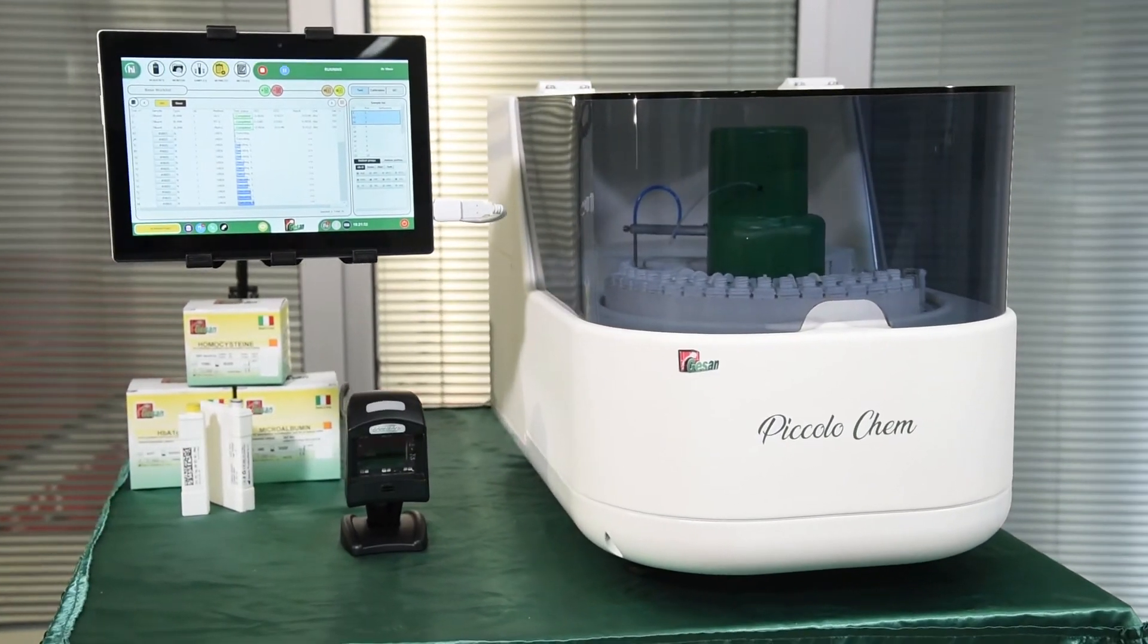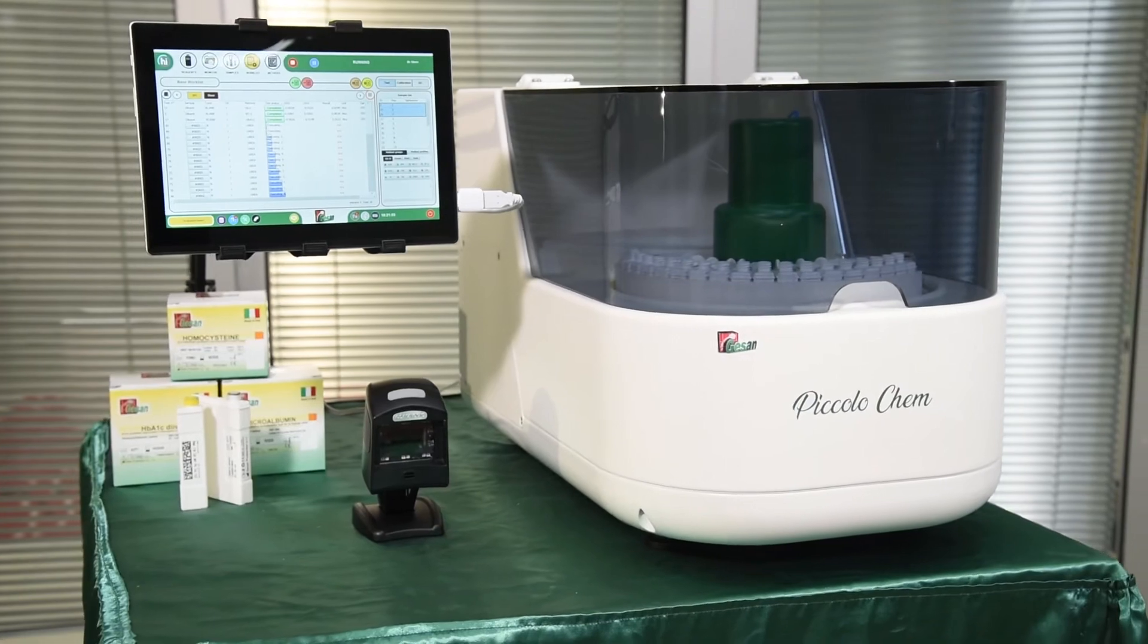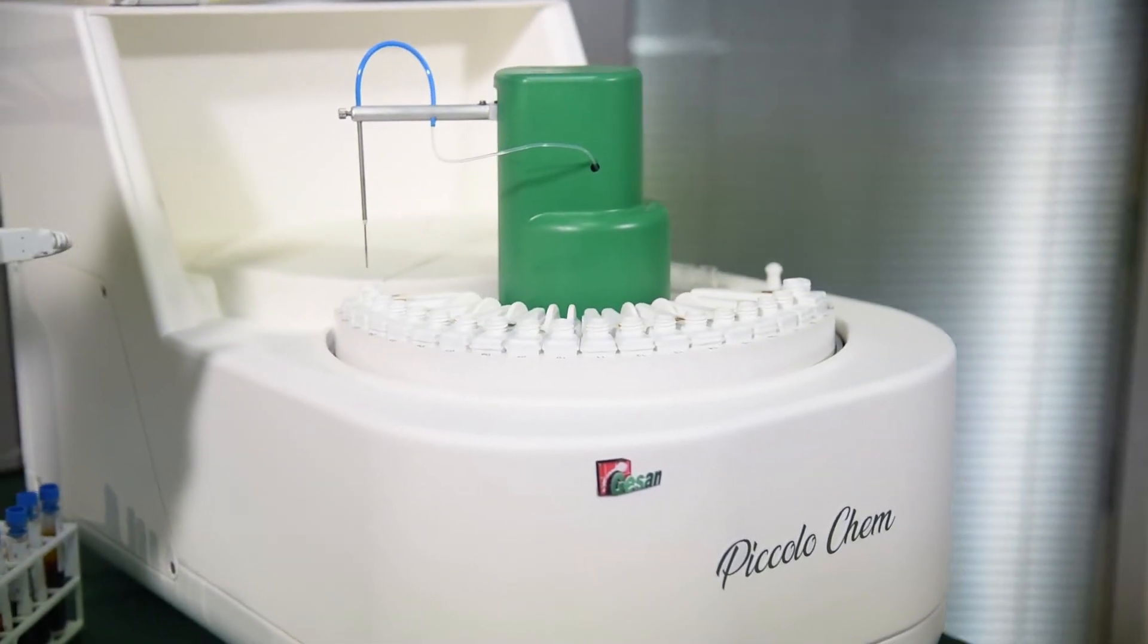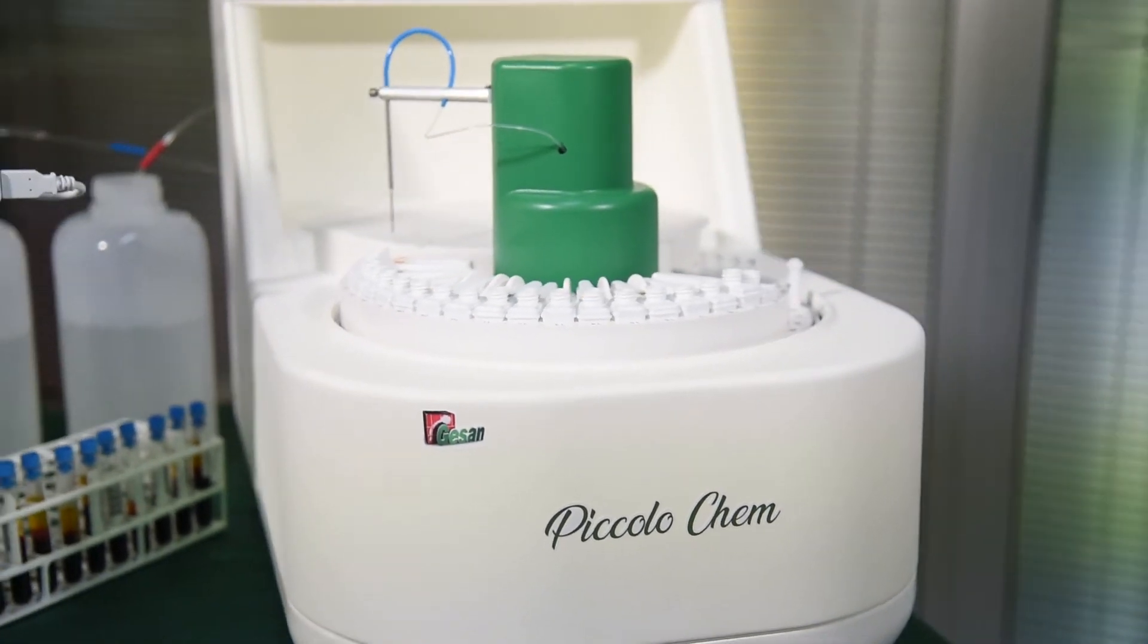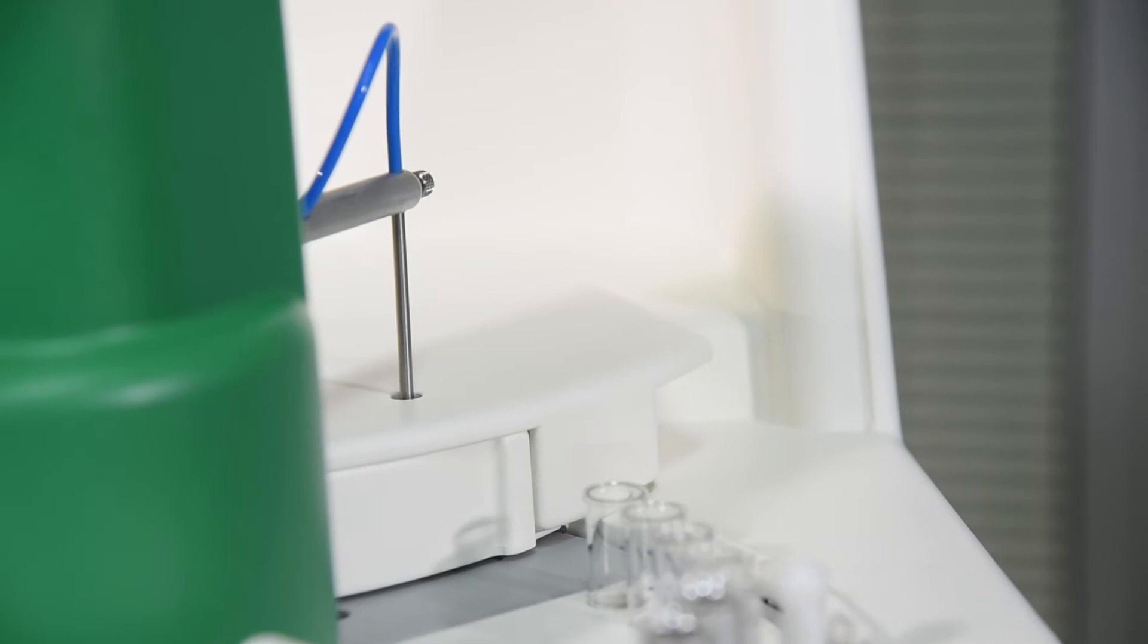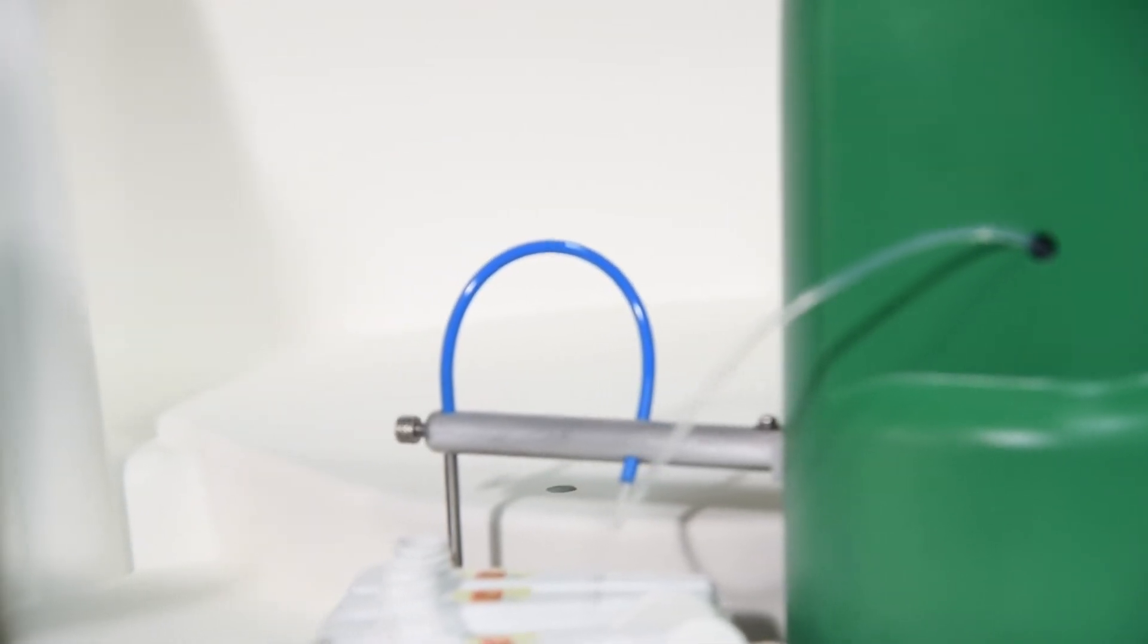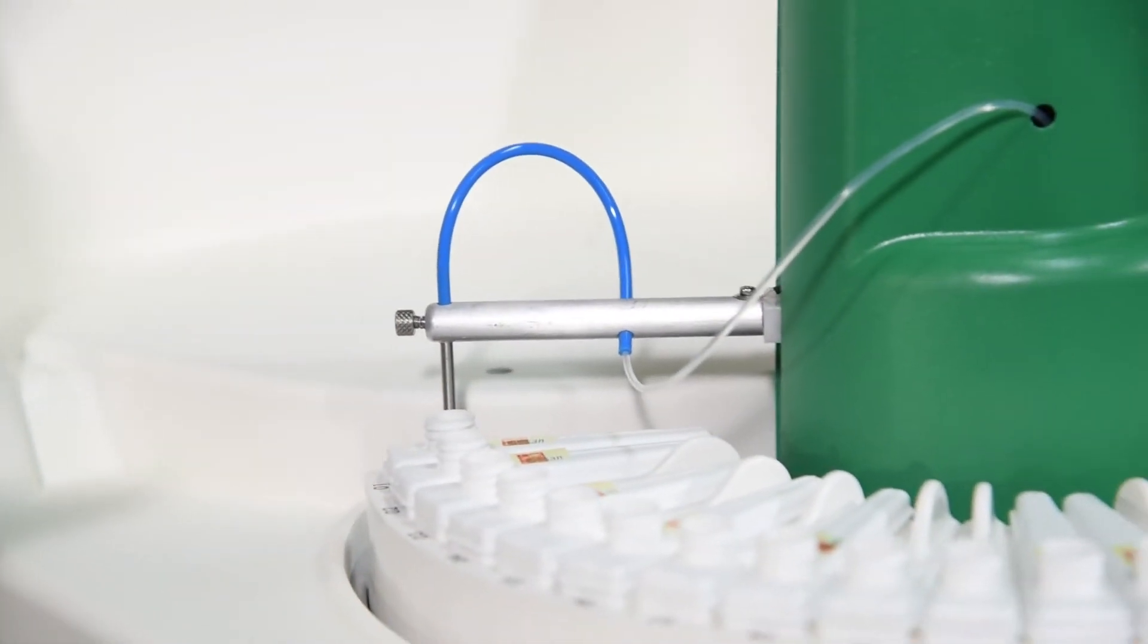System reagent methods are preinstalled and validated, and it has open channels with bar-coded bottles. Piccolo CHEM is designed for small routines or few special parameters. It maintains a high throughput, performing as a bigger size instrument.